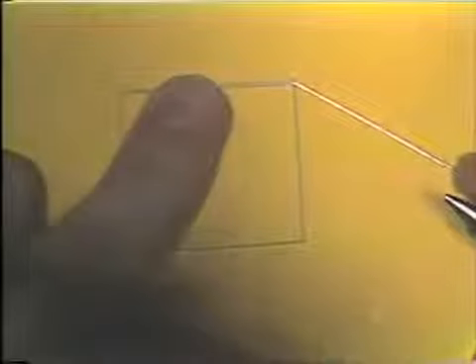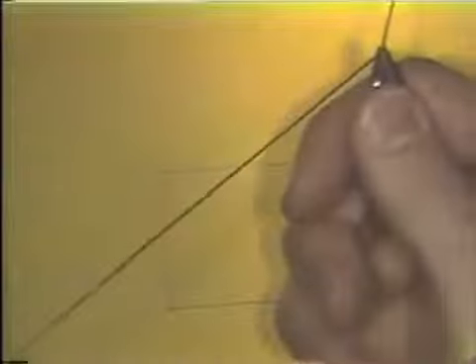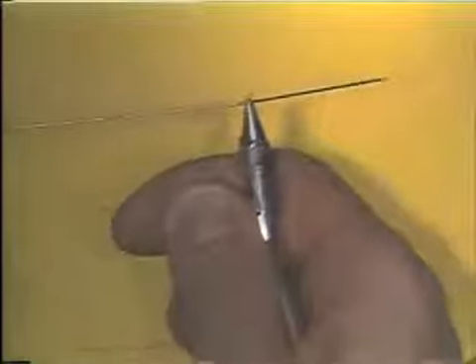At this point, you try the wire back on the pattern to determine if your bend is started in the correct position. If you're satisfied that the bend is starting out in the right direction, the plier is placed back on the wire, keeping in mind that the wire must be at 90 degrees to the long axis of the beaks of the plier.